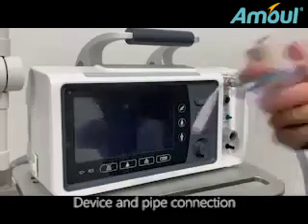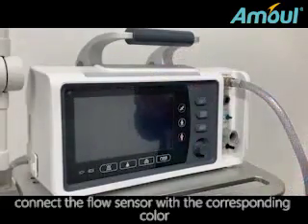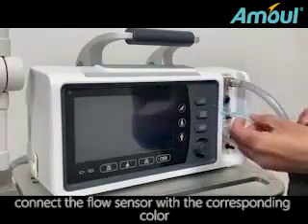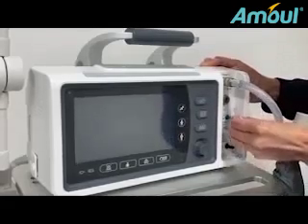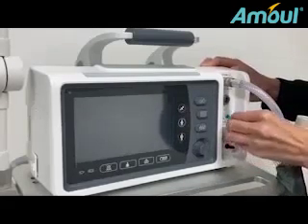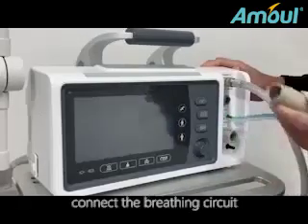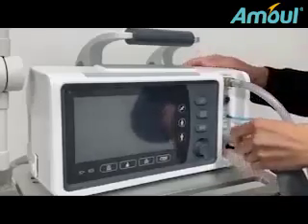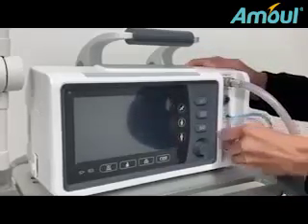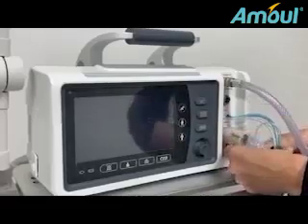Device and pipe connection. Connect the flow sensor with the corresponding color. Connect the breathing circuit, and connect the PEEP circuit.